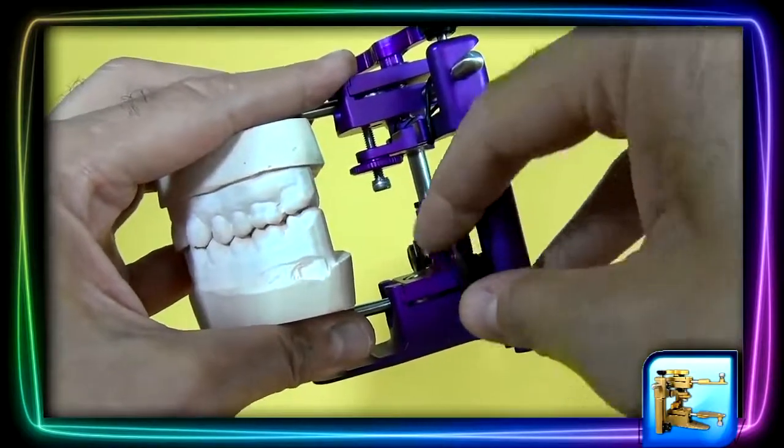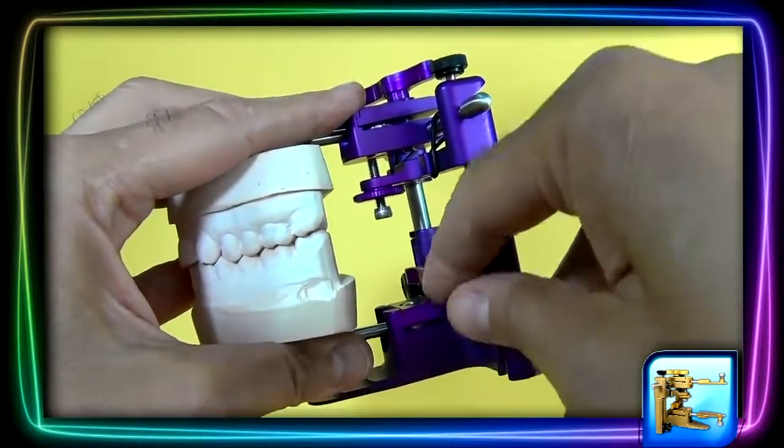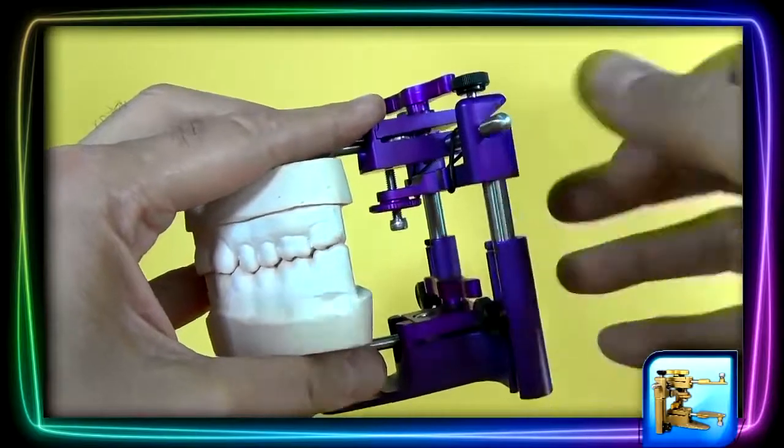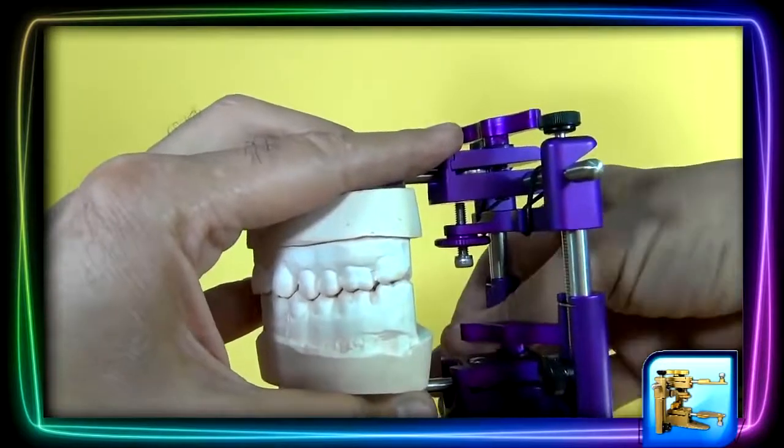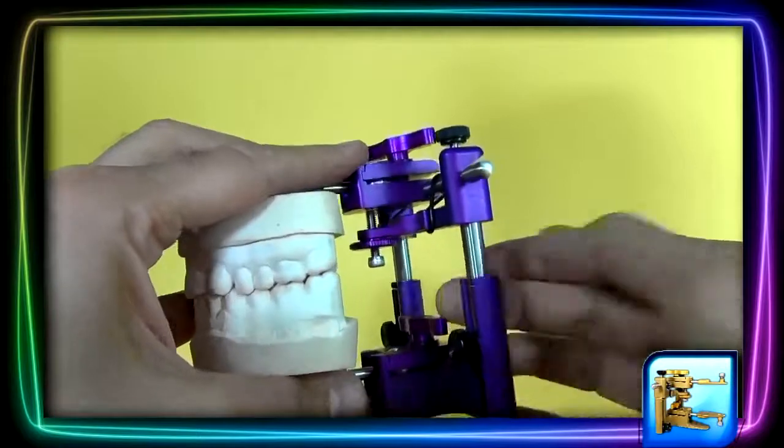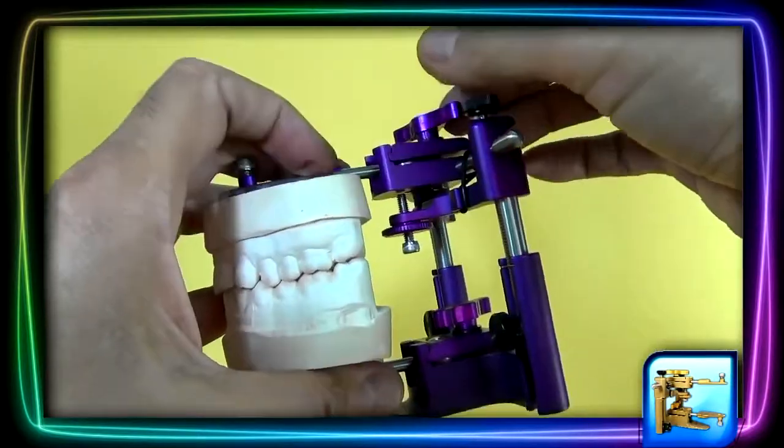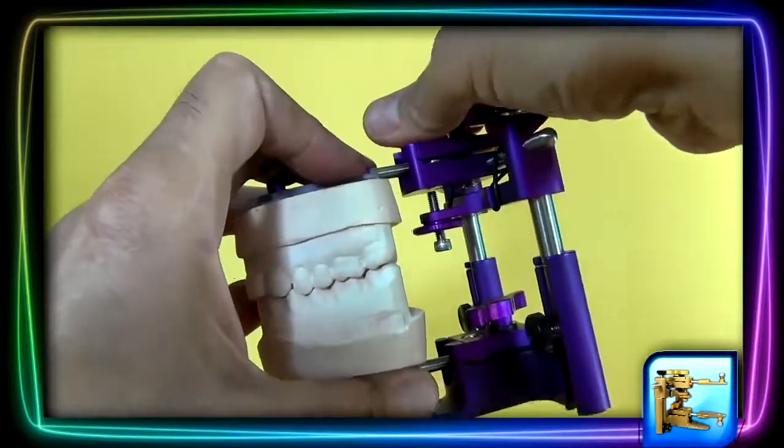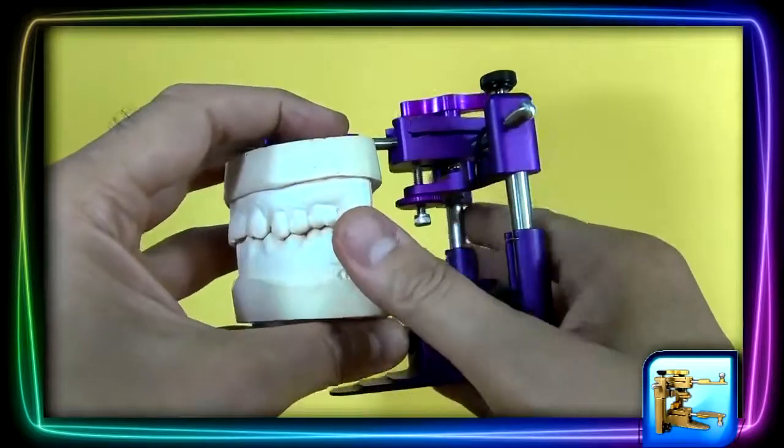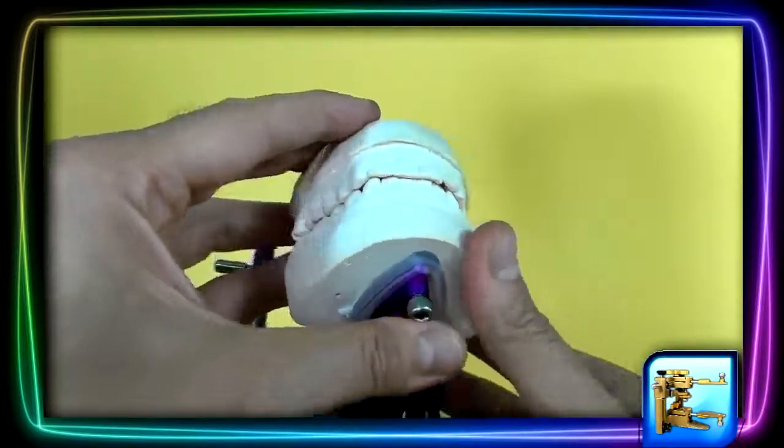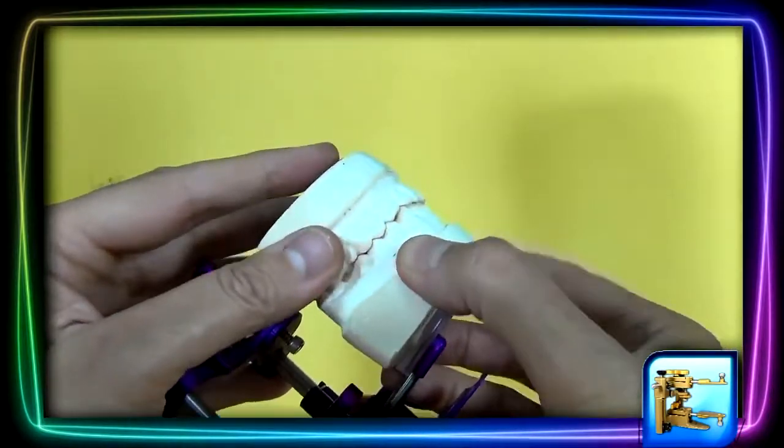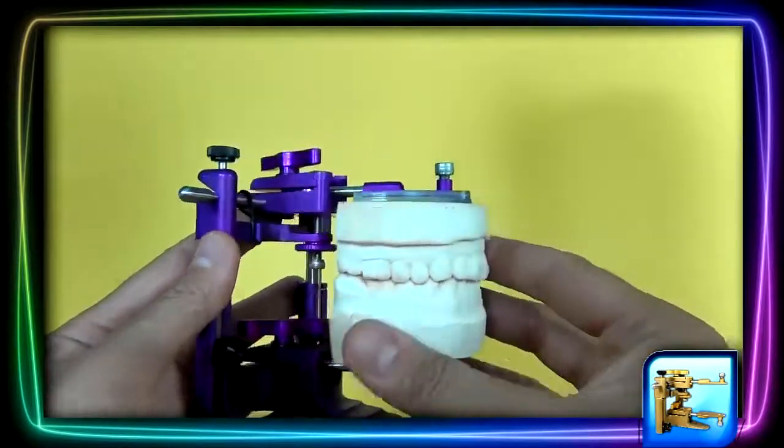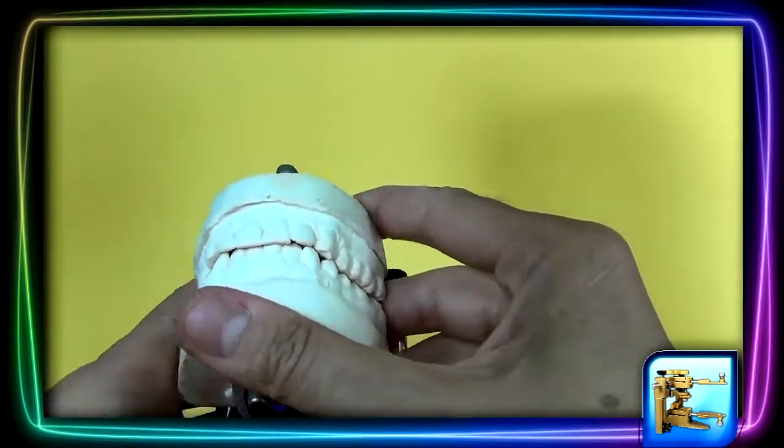Now, start tightening up the knobs that we loosened earlier. The nice thing about this articulator is that you're never locked in. And there, you're done. You're now articulated.